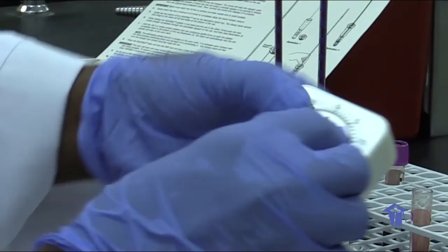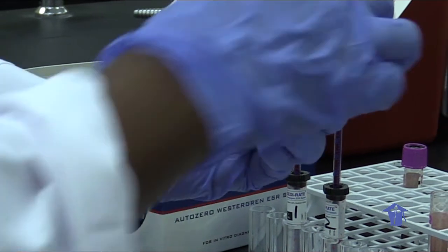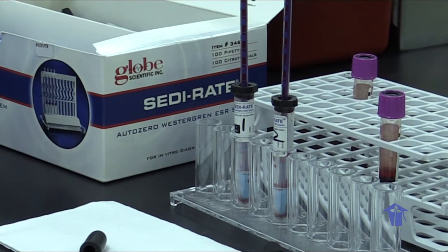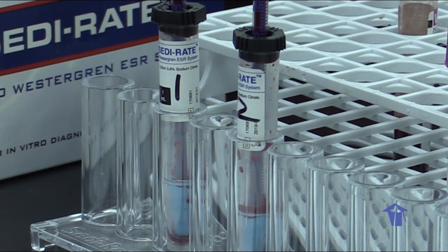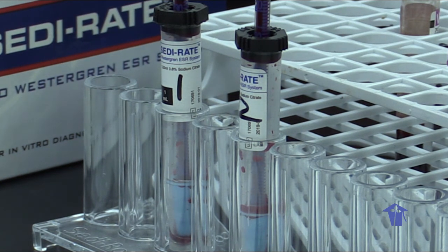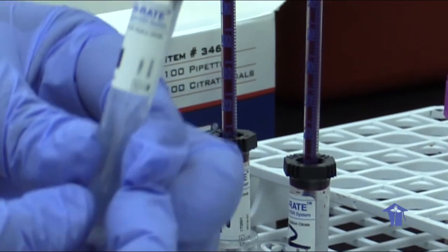Then we set our timer for 60 minutes, 1 hour. Observe that the lab technician did not forcefully push the pipette down into the sample tubes. If you push it too aggressively, the blood can come right up the pipette tubes and splash even in your face or the hands or on the counter and so on. So once you puncture the stopper of the tube, gently push it down into the sample. Don't aggressively push it down.